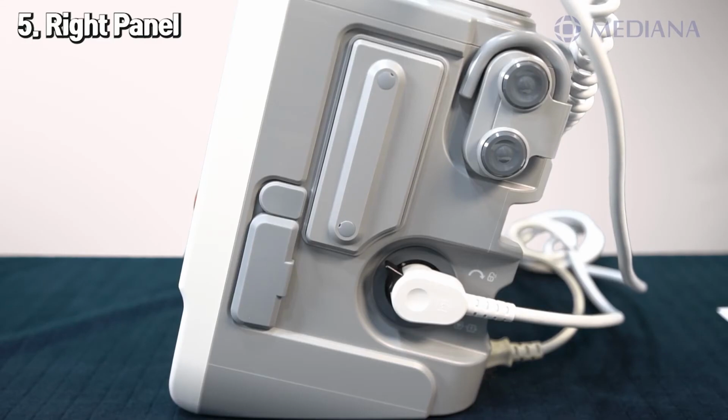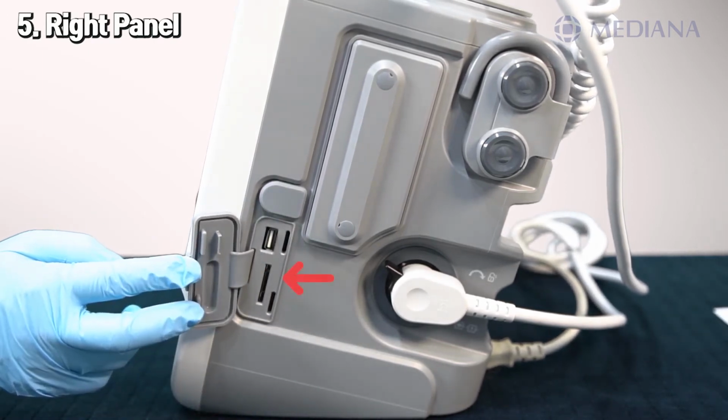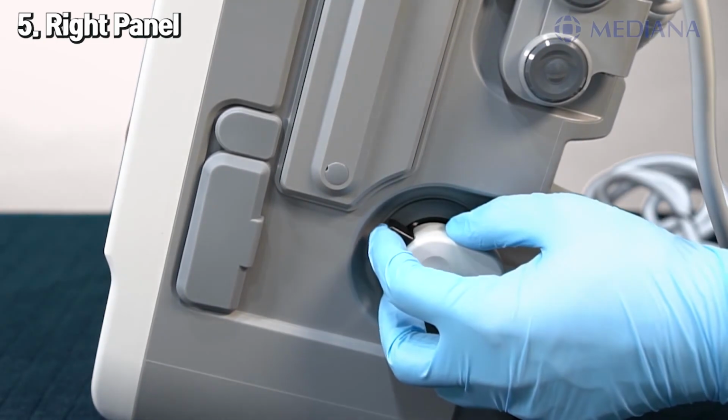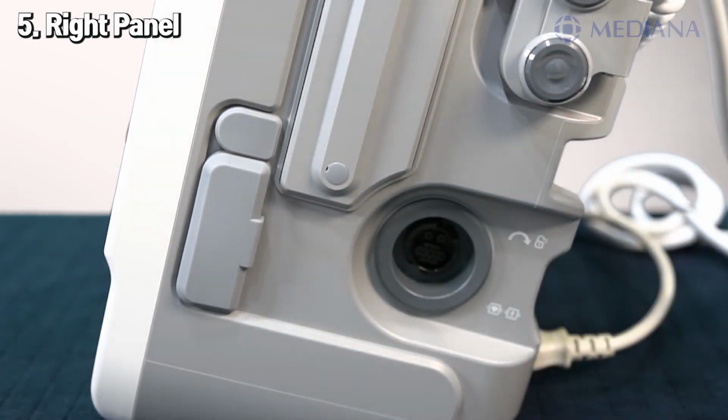As we go on to see the right part of the device, you can open this lid and there are 2 things. One is the connecting part of CPR feedback and the other is the SD card insertion hole. The card is used to update the system software, to load voice prompt data, and also to download the trend data. The connector part is user-friendly designed so that the user can easily connect paddles or pads. When removing the connector, it can be removed by pressing the lever attached to the connector connection part.